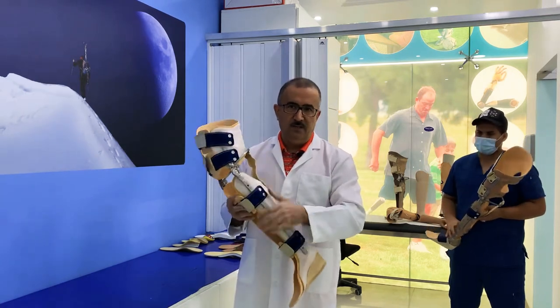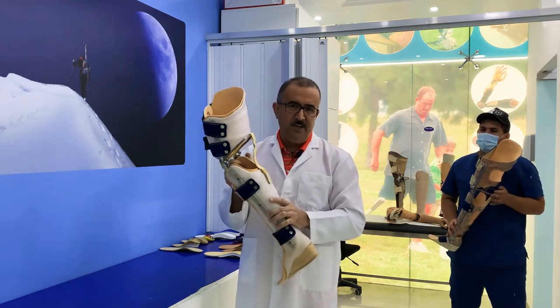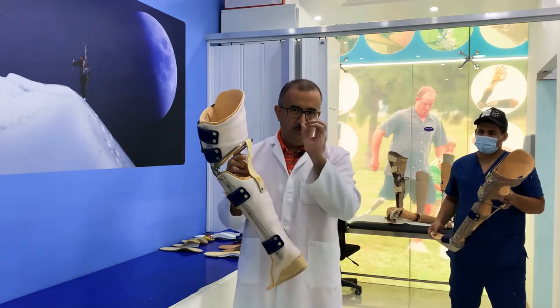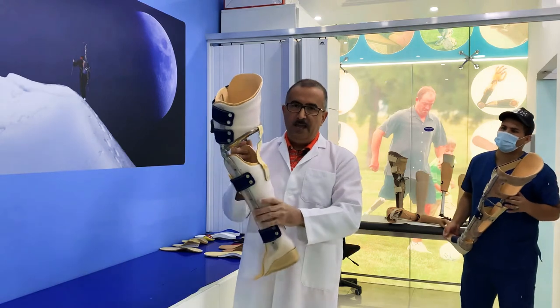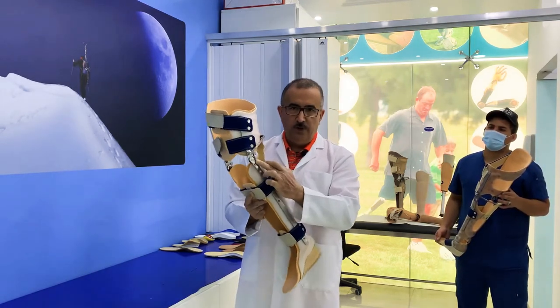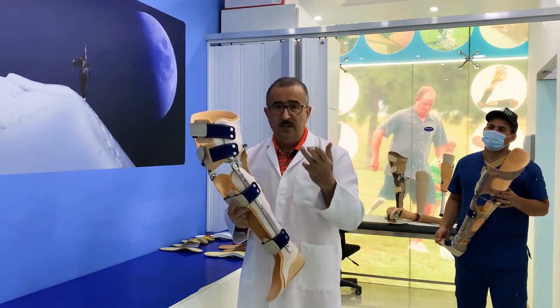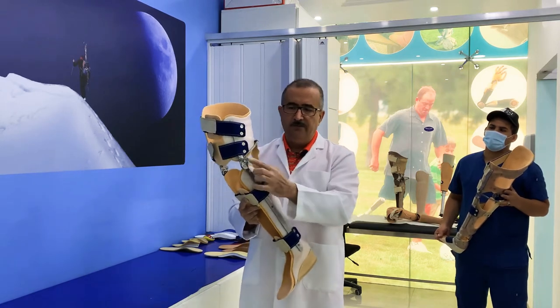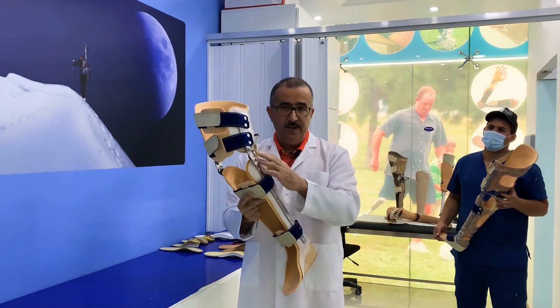Ask them how many years of experience they have and let them show you evidence and proof of their work — whether they are truly able or just know how it looks without having enough idea about the points which are important for gait and walking. What makes the pricing different is what kind of joint is used — steel, aluminum, or titanium. More than 15 different joints are used for this KFO, so you have to be really careful.